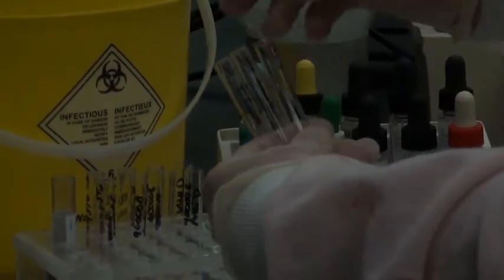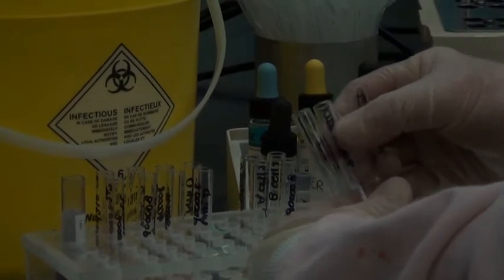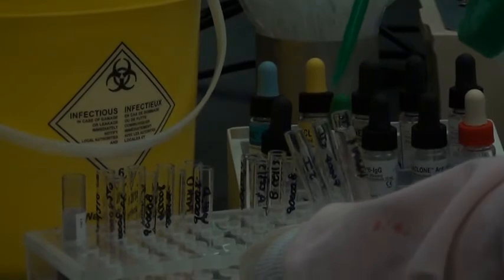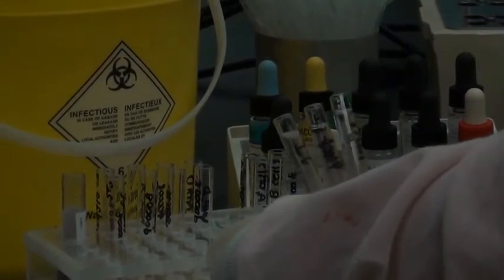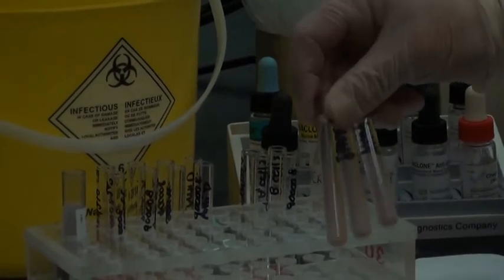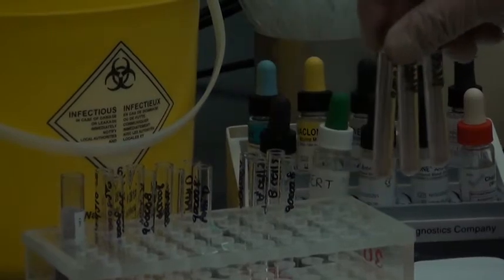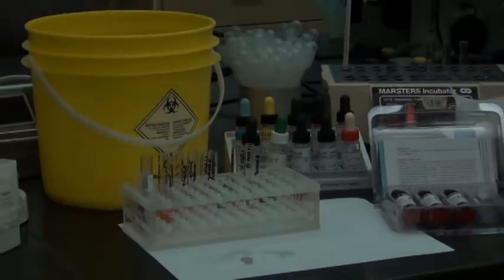Okay, so I hold my test tubes, I hold the lids of my test tubes apart so that they're not touching, and I forcefully add saline to each of these tubes. So close to the top, and you want to be forceful so that the cells are being suspended throughout the test tube. You won't just end up with cells down at the bottom. So in they go for 45 seconds for the wash spin.